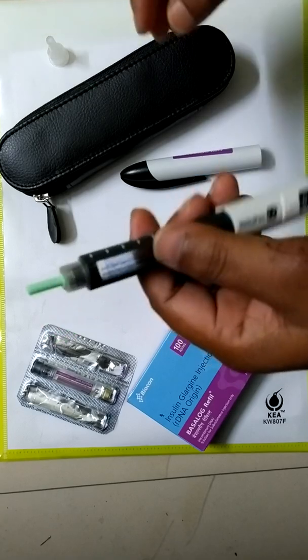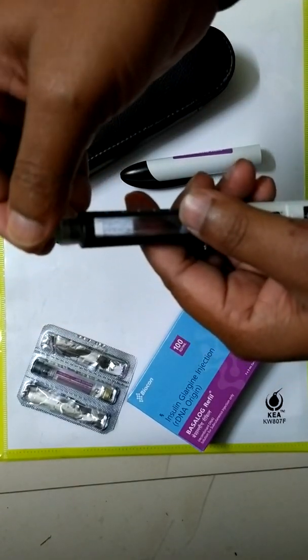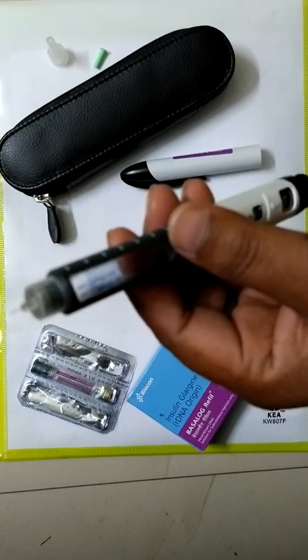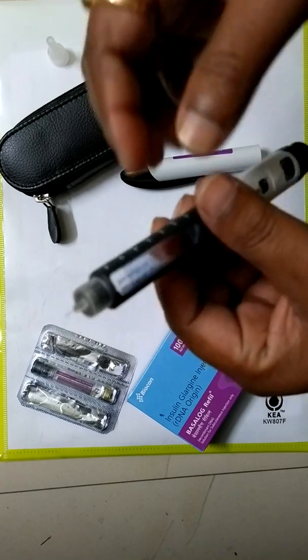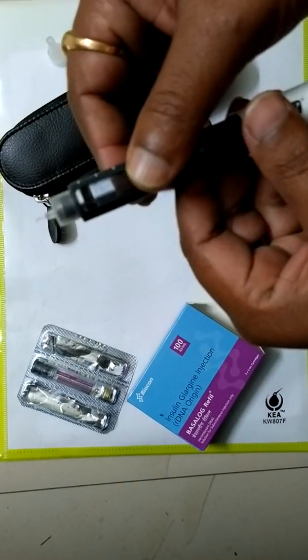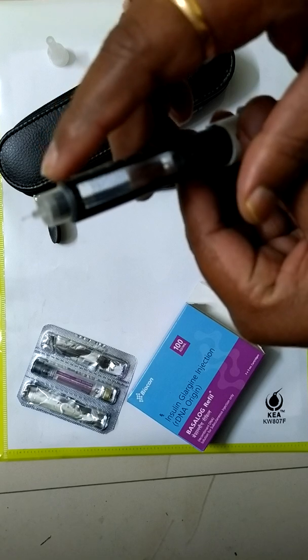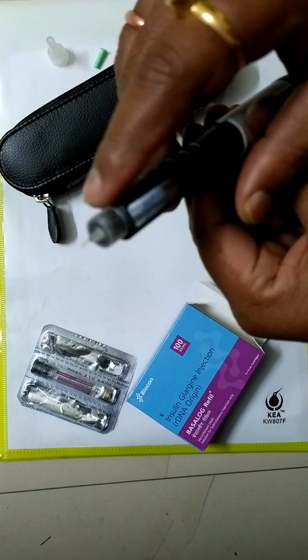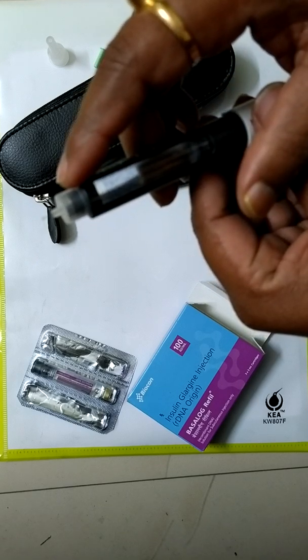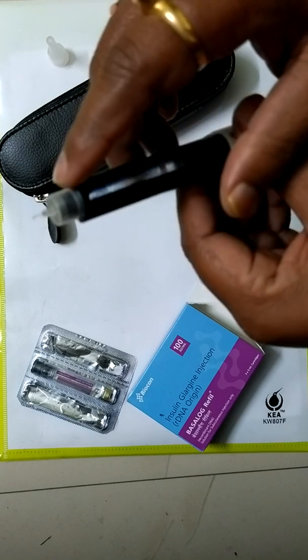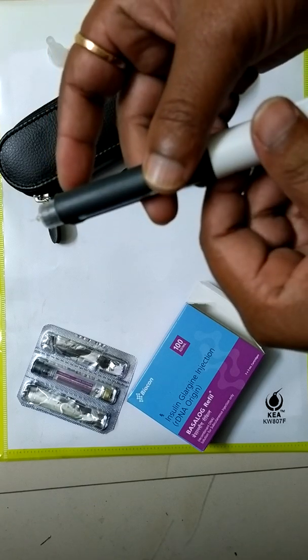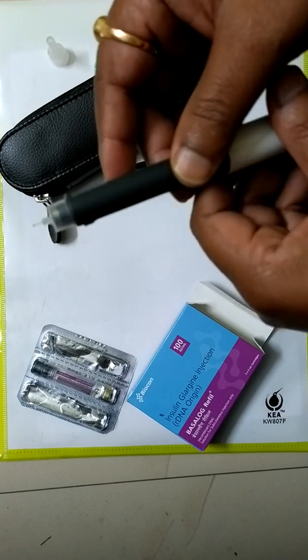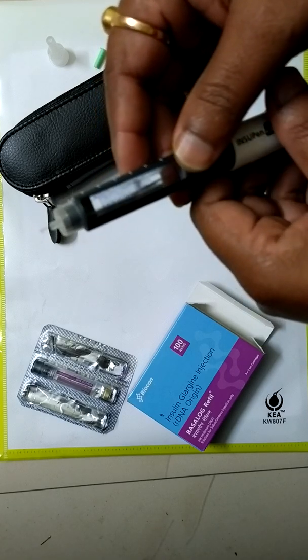Pull the outer layer cover and then the inner cover. Every time you should change the needle after a single use to lessen the chance of contamination.